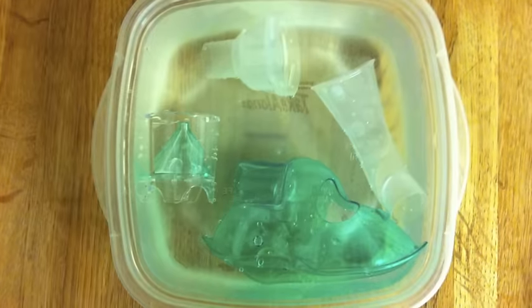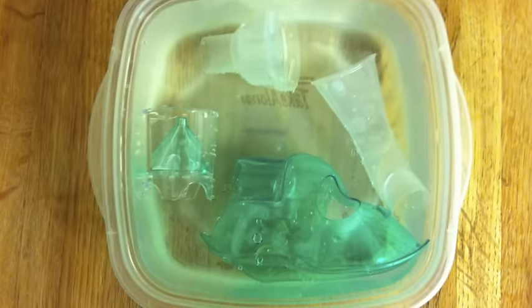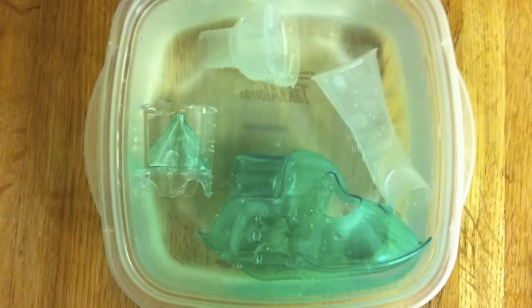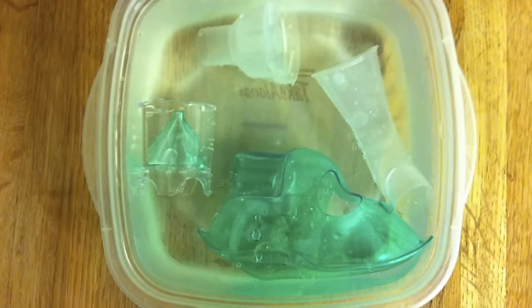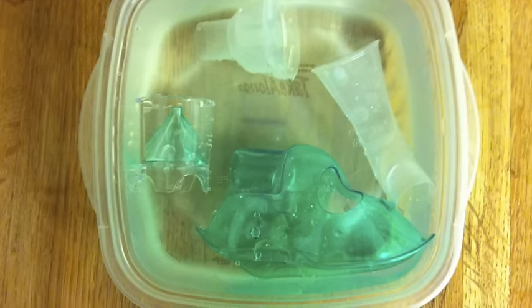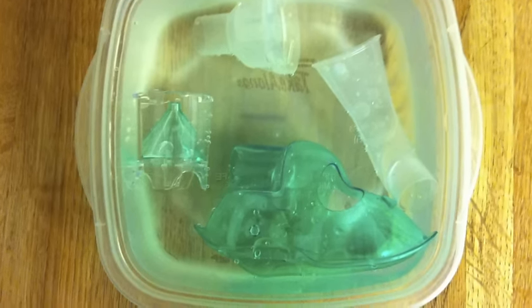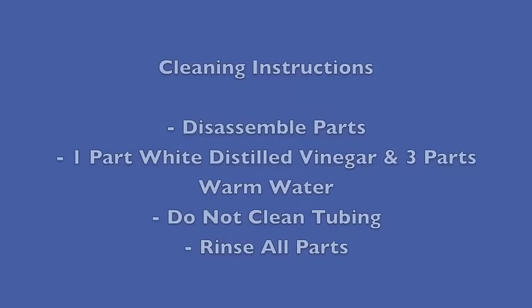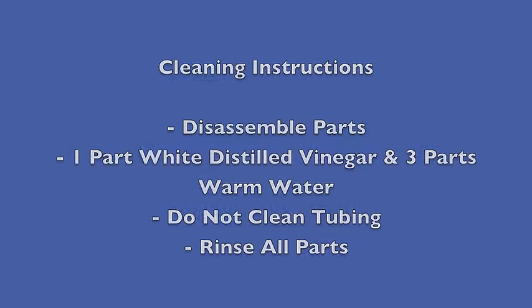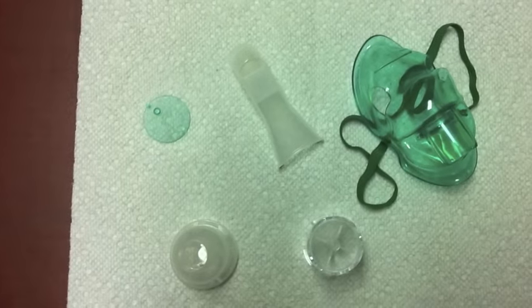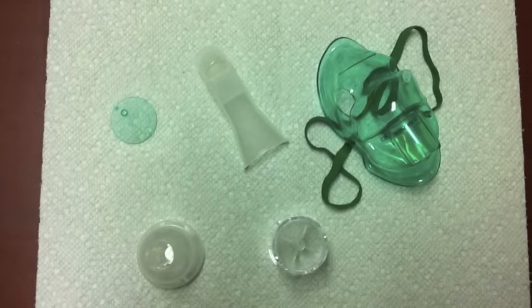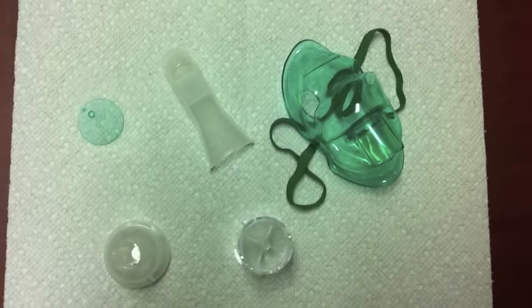The medication cup and mouthpiece or mask needs to be cleaned between each treatment. Disconnect the mask or any other patient accessory interface and disassemble the medication cup. These pieces can be cleaned by simply using one part distilled white vinegar and three parts warm water. Do not clean or rinse the tubing. Rinse all of the components with warm water and lay aside to air dry away from direct sunlight.